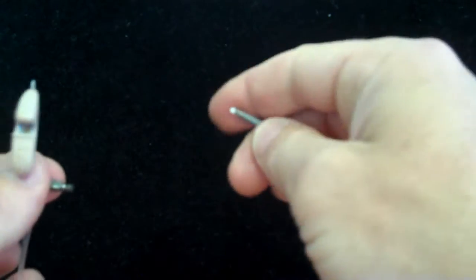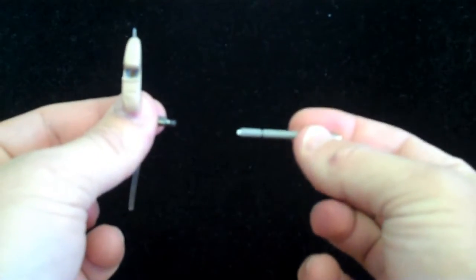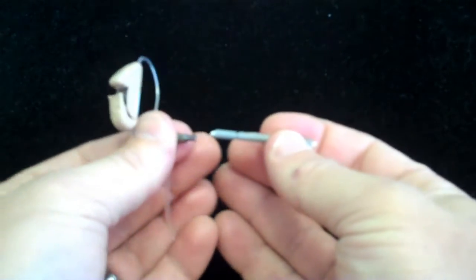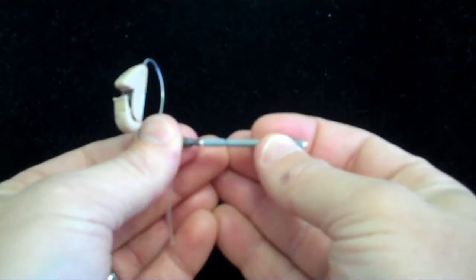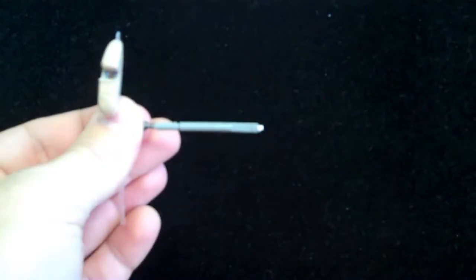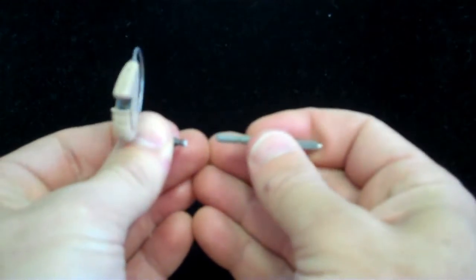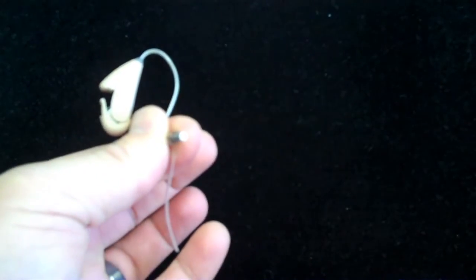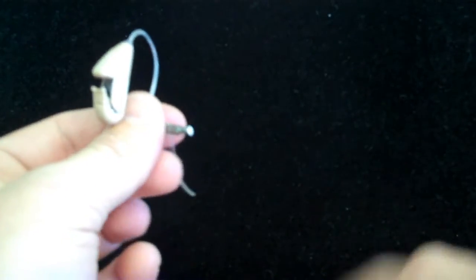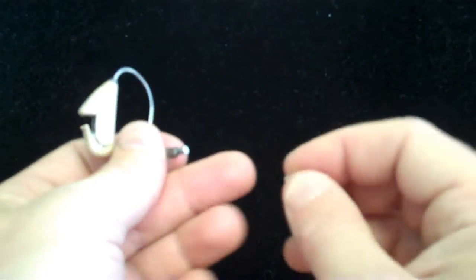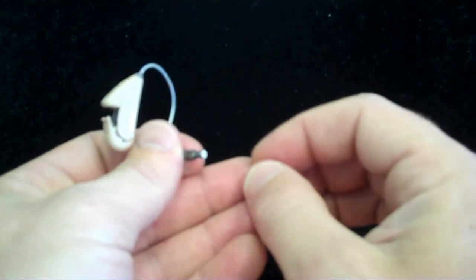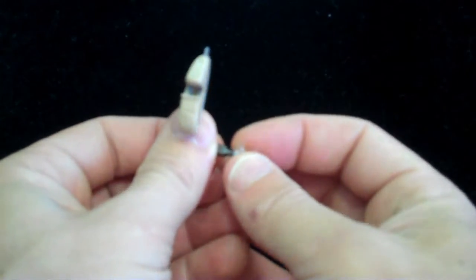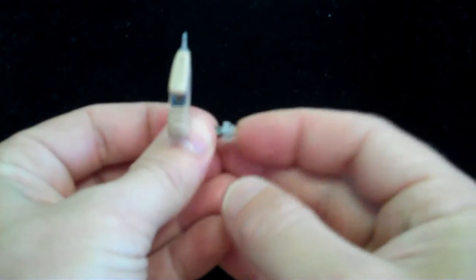We take the tool, turn it around, push the new trap directly into the hole, and remove. The wax trap stays in the receiver. We've just replaced the wax trap on this hearing aid. We can then slide the dome back on the tip just like so.